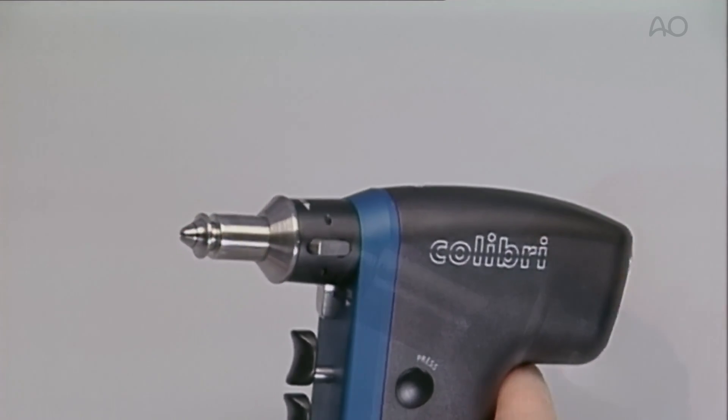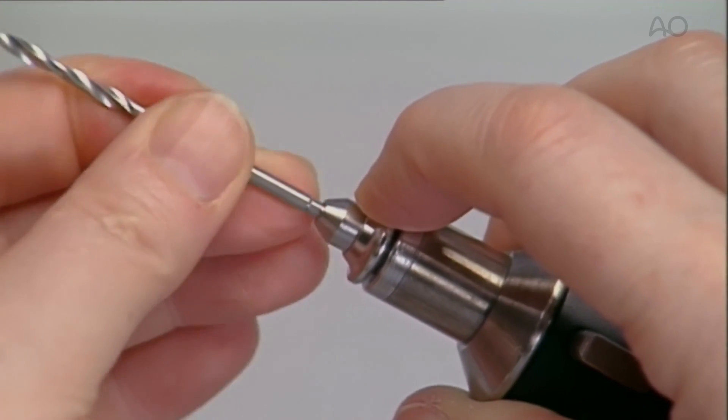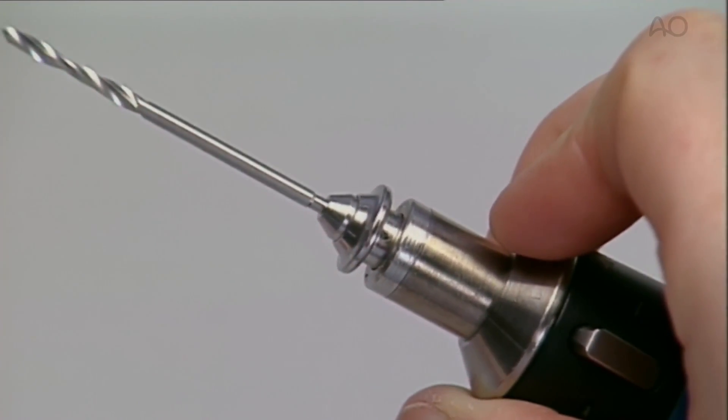To connect a tool, the collar on the attachment is retracted and the tool is inserted while rotating to fully engage and verify.